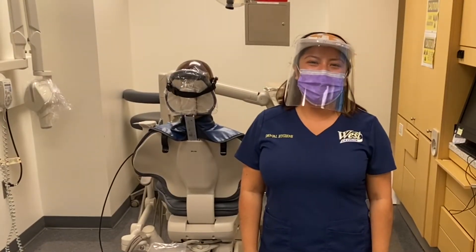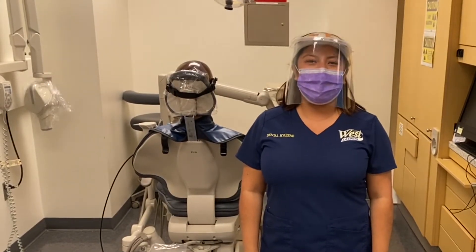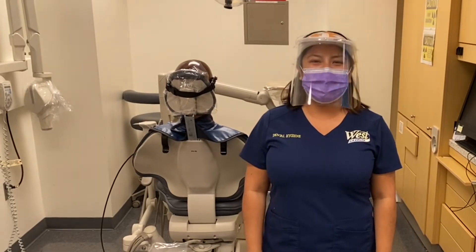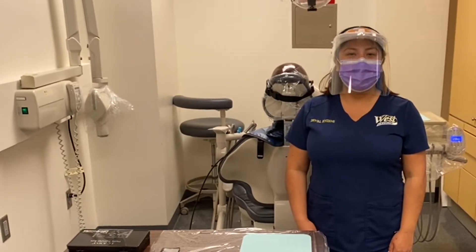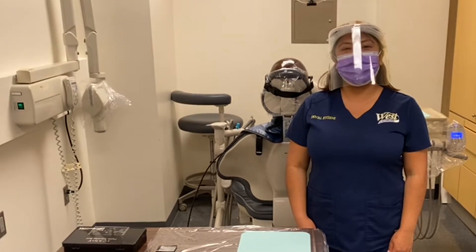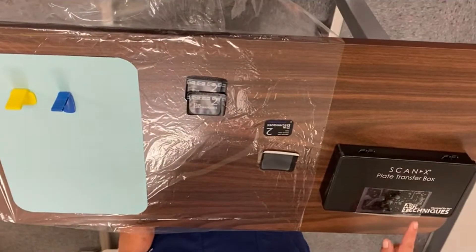Hi, my name is Arely Velasco and I'll be going over how to take phosphor plate x-rays. I'll be going over some of the armamentarium that we need to take those radiographs, starting with the plate transfer box.